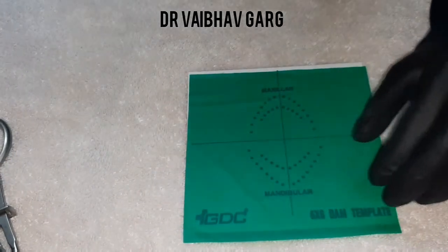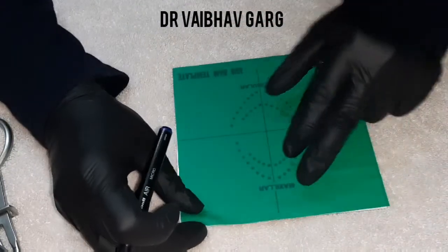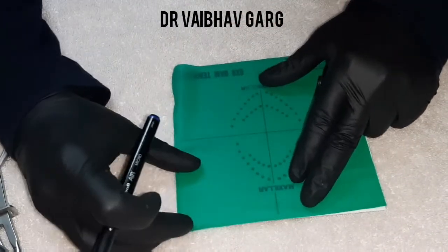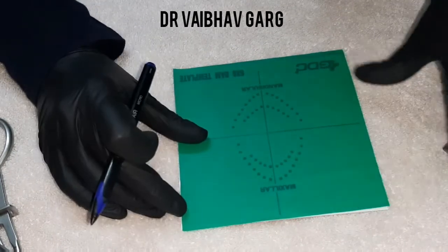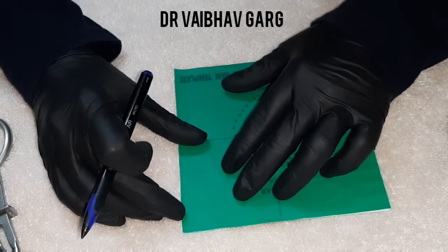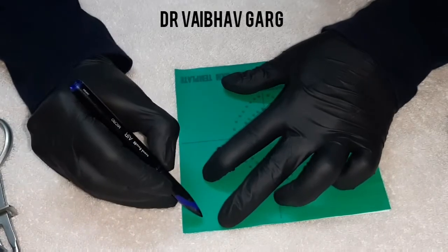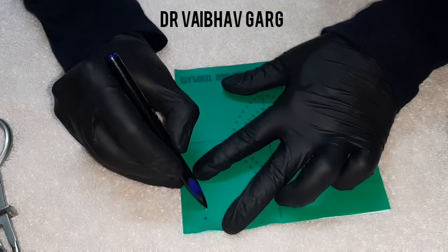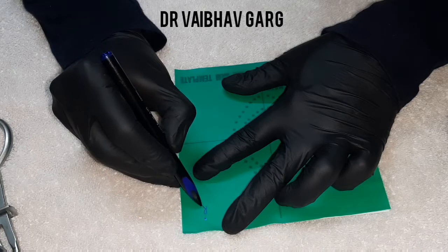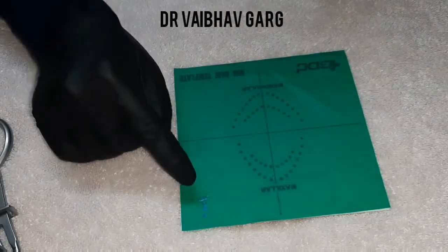Let's start. When using the sheet, you need to orient yourself so you don't make mistakes. Some practitioners make a small orientation mark — a small dot — or write 'R' to represent the right side of your hand.